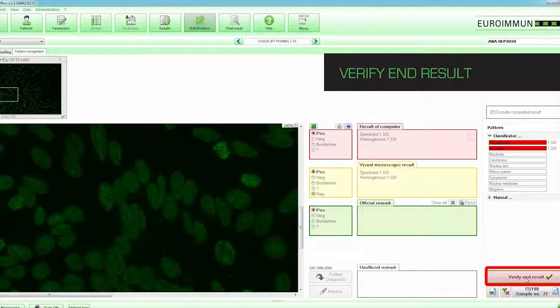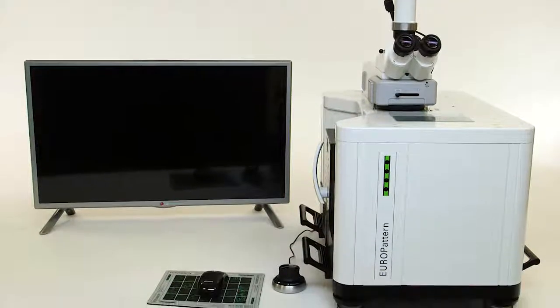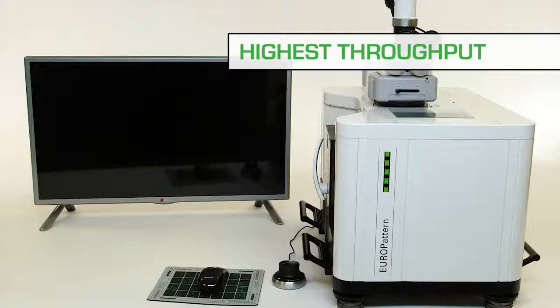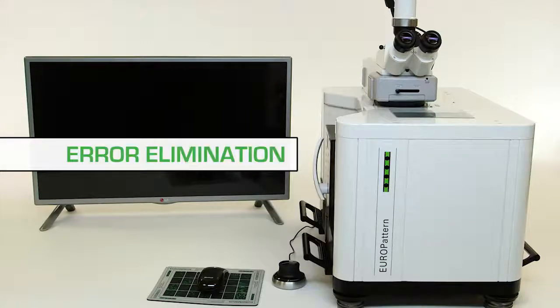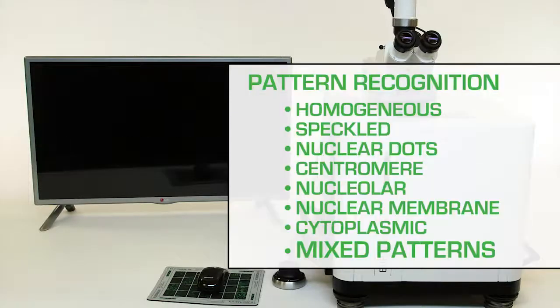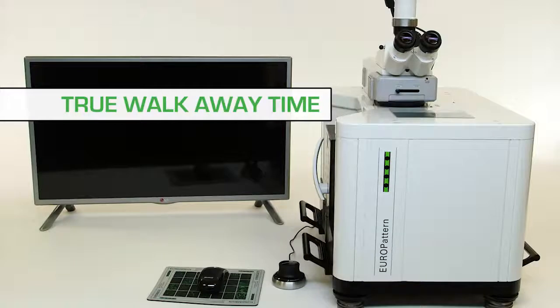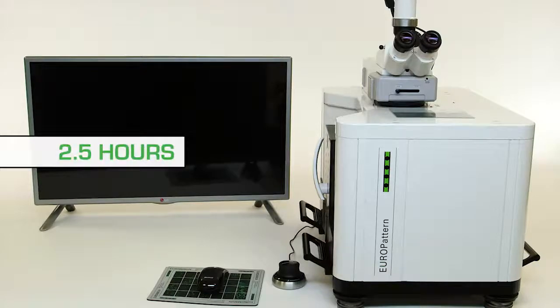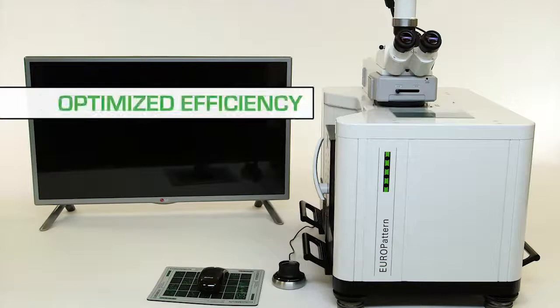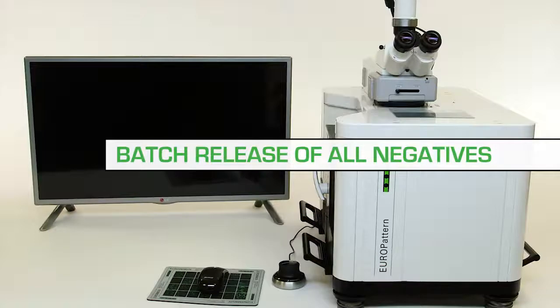By clicking on the Verify End Result button, the result is transferred to the final report. This concludes the Europattern demonstration video. The Europattern system maximizes throughput and efficiency by offering the highest slide capacity and the shortest processing time available. Errors are reduced or eliminated completely by offering the technologist automatic recognition of seven patterns including mixed patterns. True walk-away time is realized through the Europattern's ability to process up to 500 wells in a single run in two and a half hours. Turnaround time is dramatically reduced and workflow is optimized through the efficiency of the Europattern system and the ability to batch release all negative results with the click of a mouse.